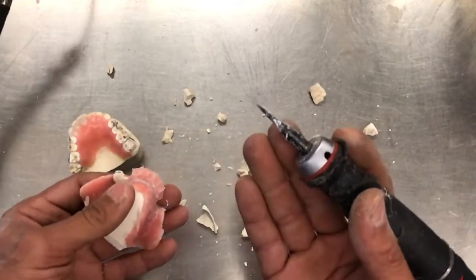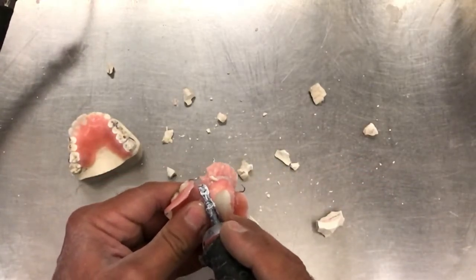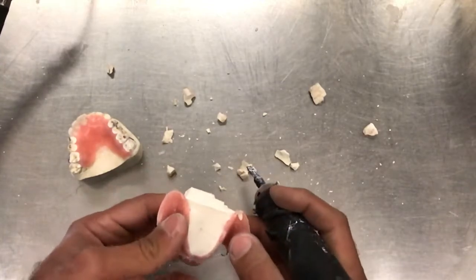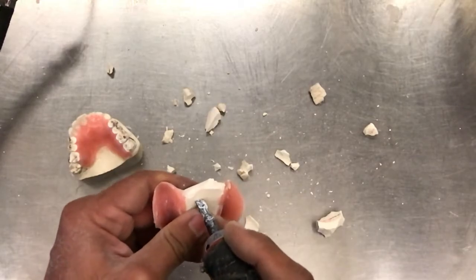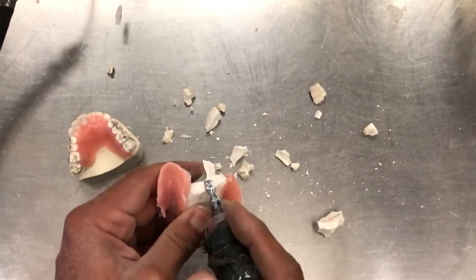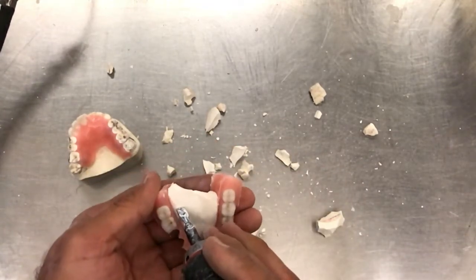I always pivot my right hand that holds the chisel up against the case because you don't want to slip. Now this portion here — remember we have the two little extensions. You've got to be very careful not to pry the case open and possibly break it. So work on it in small sections, and be very sensitive when you come near the middle here because you could break it.